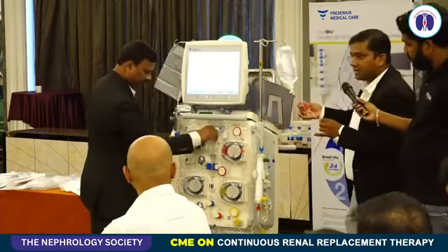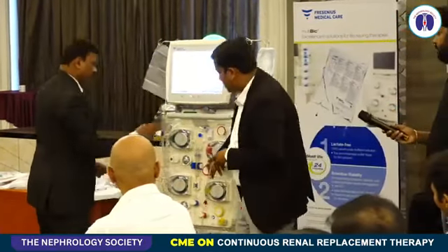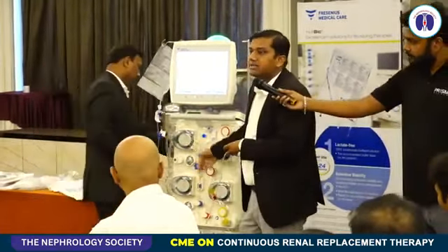So this is the arterial line, which we plugged into the saline, you will see, followed by the arterial pressure. Arterial pressure is basically the access pressure.